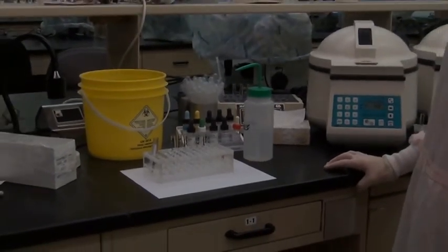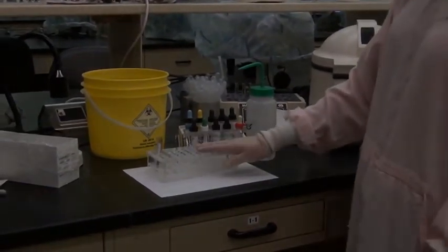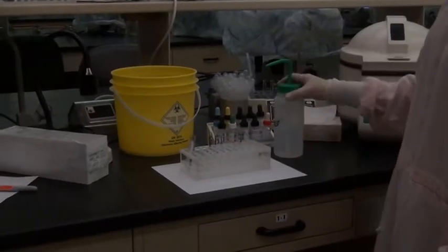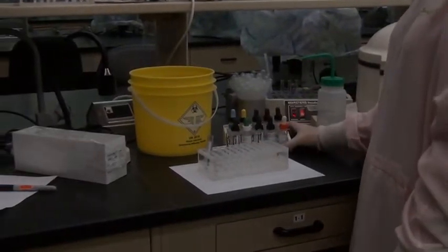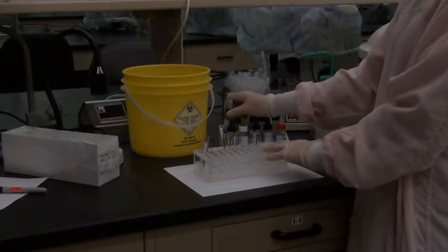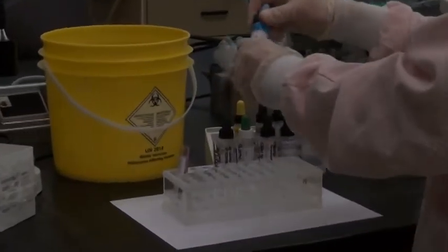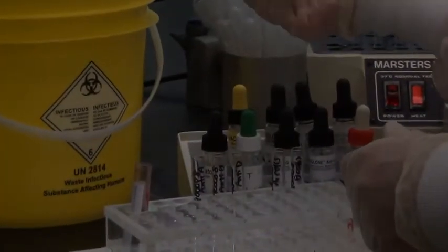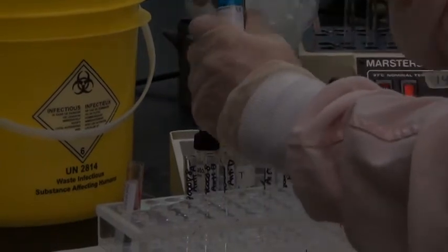So while I'm waiting for that to wash, I'm going to pipette out my anti-serum into the forward grouping of my ABO. So I have my anti-serum rack right here behind the test tube rack. I grab the anti-A, just give it a little inversion, you don't have to shake it up too hard.